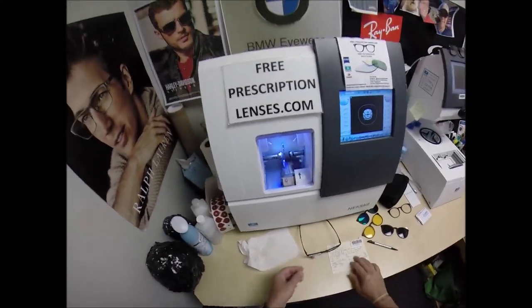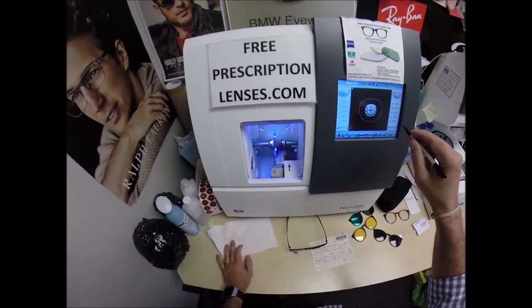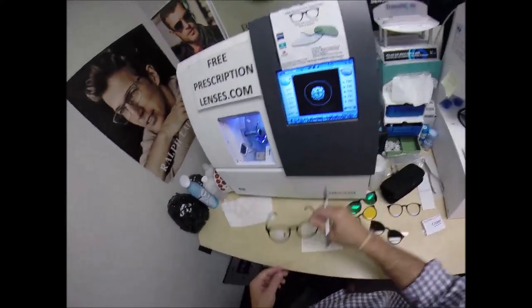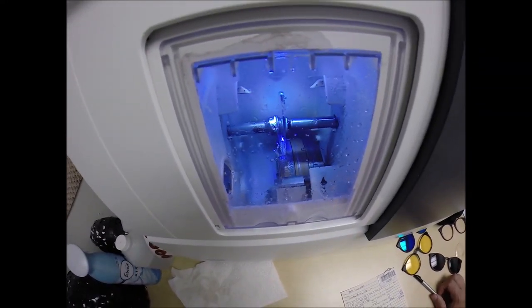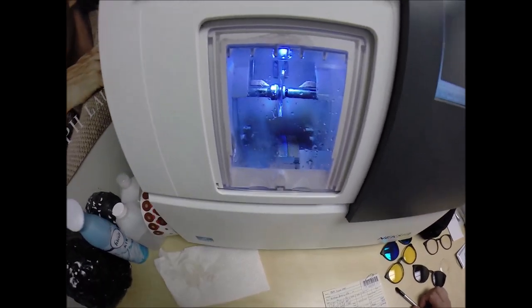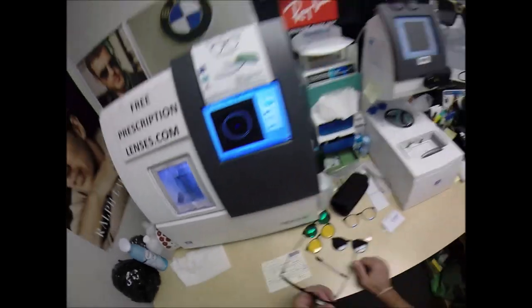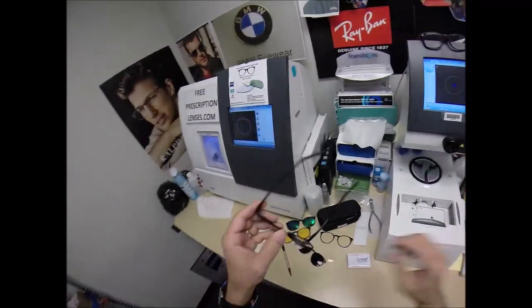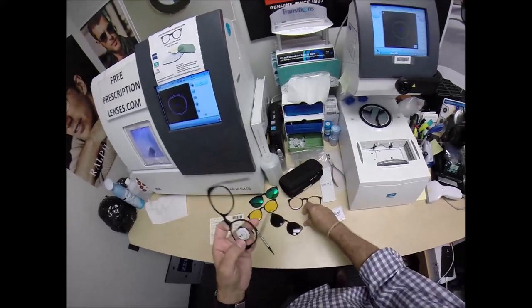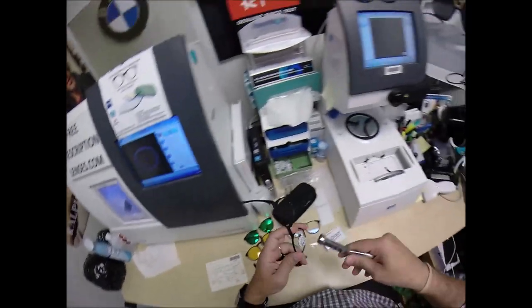And that streak will come to an end tonight on my way home. But don't worry, I'll get these in the mail first. So, let's go ahead and hit the start button. The door closes, the clamp shuts. The lens is being traced again by the two styluses, this time making sure that this lens is large enough to fit into the left side. And you can see as it's going around tracing the shape. And then measuring the thickness to know where to place the bevel, for you have the least amount of edge thickness showing. Of which, Bob, you got nothing. You got no edge thickness there. But the reason why I put the safety bevel on there, I want the back of the lens to be smooth so that when I press the lens into the frame, I don't want any sharp edges coming in contact with your frame.